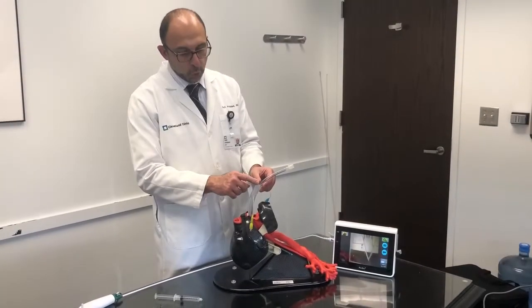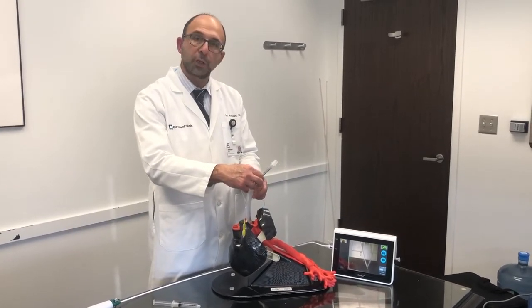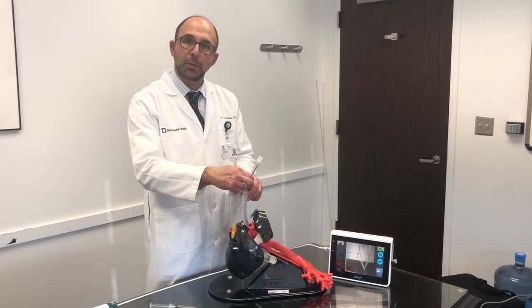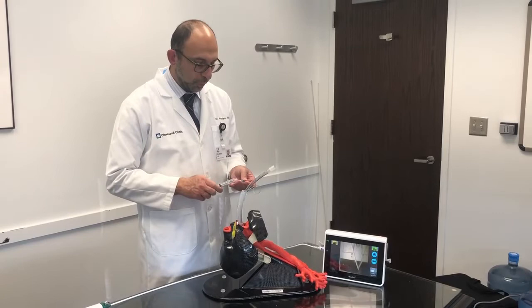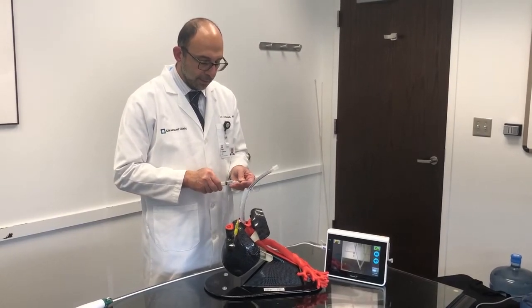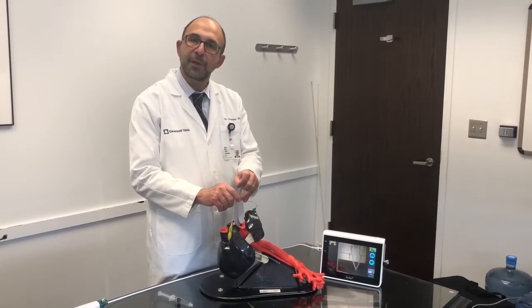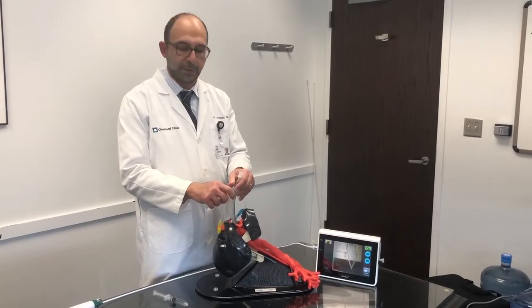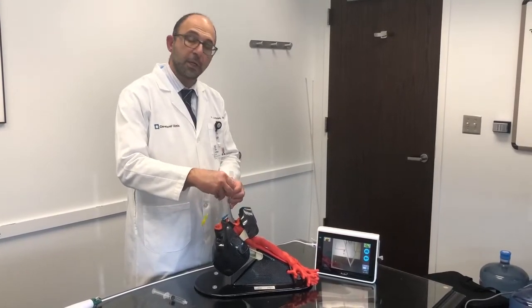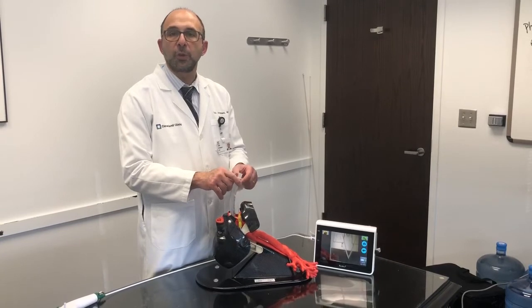Longer tube piece of AZ airway makes it possible for the endotracheal tube to be secured. And keep in mind that the endotracheal tube could be slid inside the AZ airway back and forth without stopping the ventilation to convert endotracheal and supraglottic ventilations in a reversible manner. To make a staged extubation possible, the endotracheal tube can come to the supraglottic position.